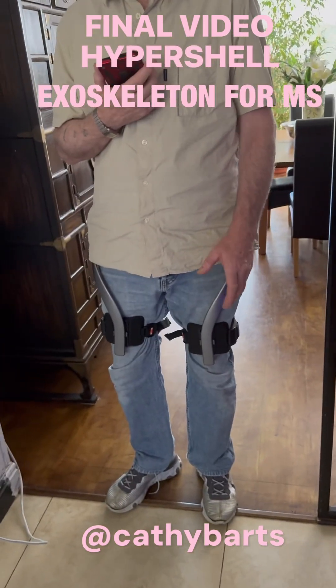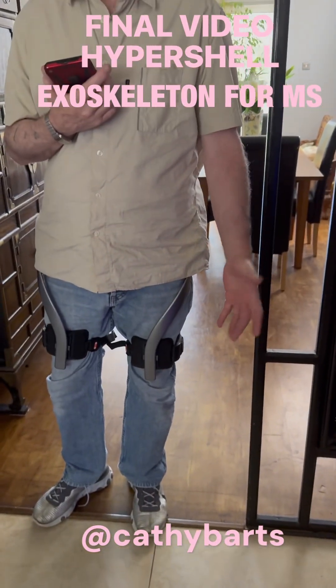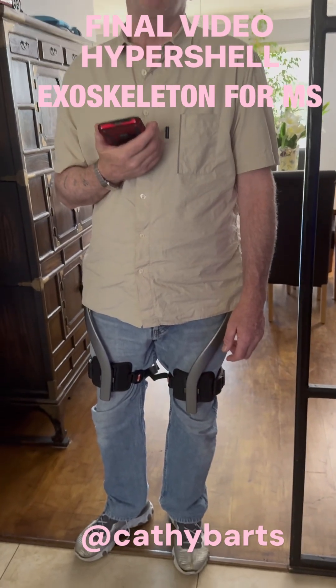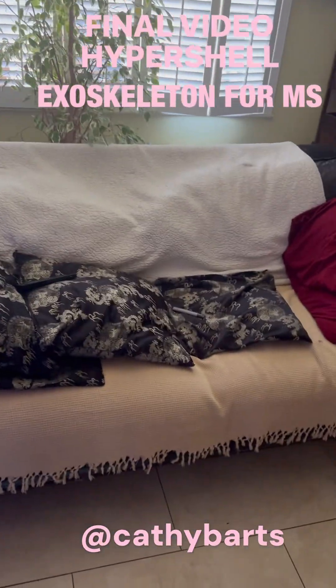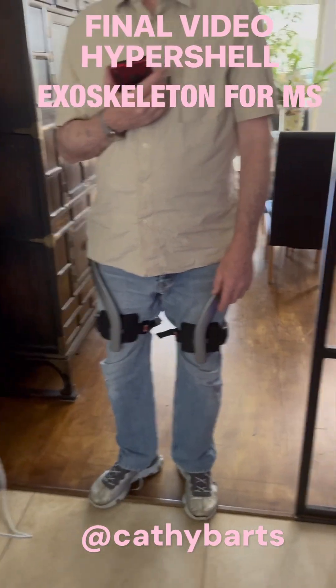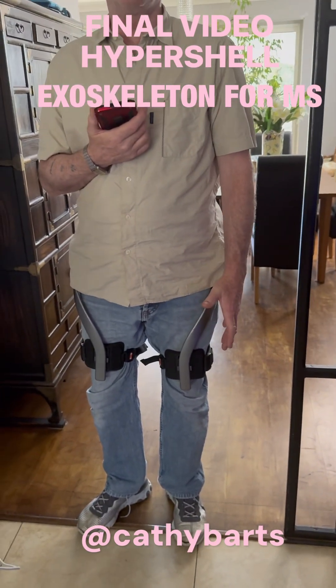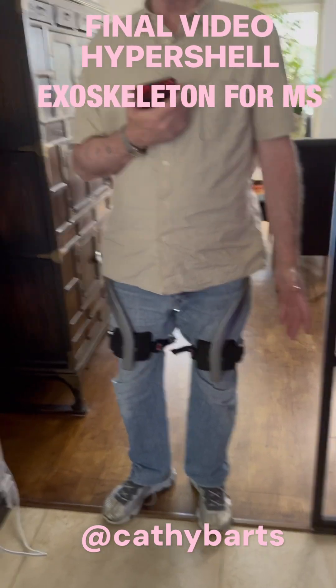From what I've heard, it's got to go back as new — immaculately packaged. So you have to take that seriously before you make the purchase. Has your quality of life improved? I've spent days laid out because of the pain. I'm on no opioids — they don't help with pain. I feel like I've done a physio neuro workout on the legs, which cannot hurt.